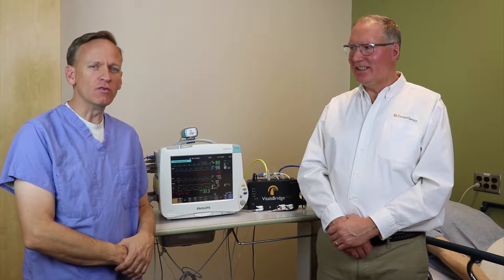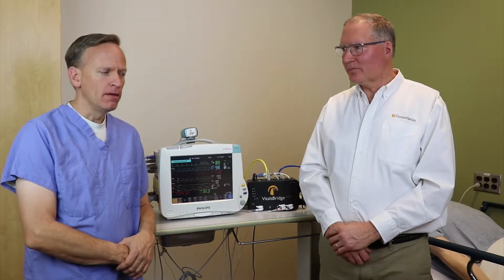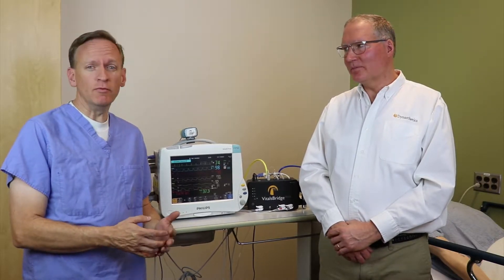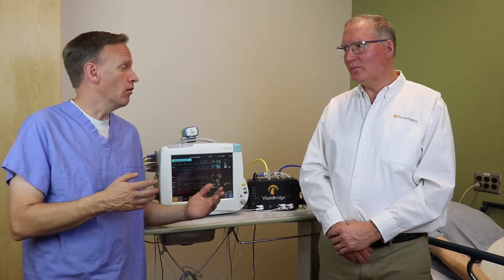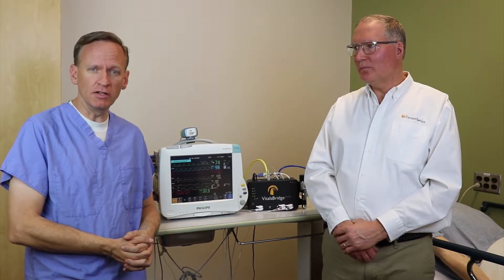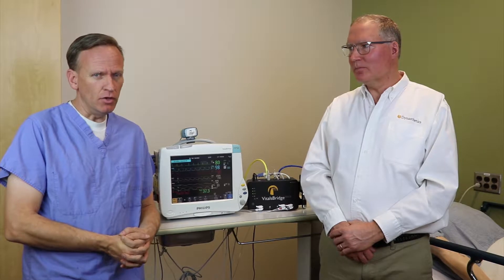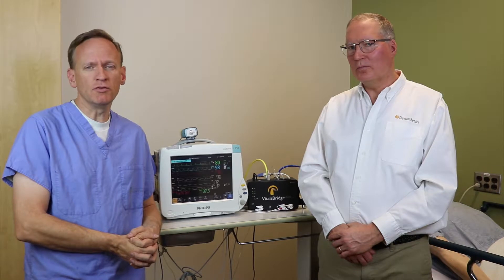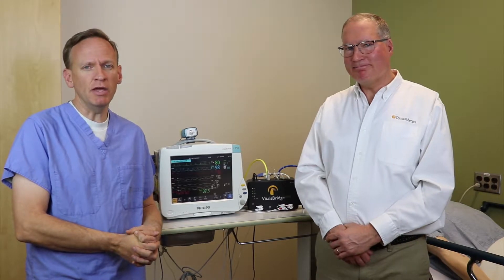One of the biggest questions we get all the time is: is the VitalsBridge compatible with my patient simulator? The good news is we provide a lot of different ways to allow your mannequin or standardized patient to work with the VitalsBridge. On the simplest level, we use either a connector application that runs on an Android-based device or a Windows PC-based device.